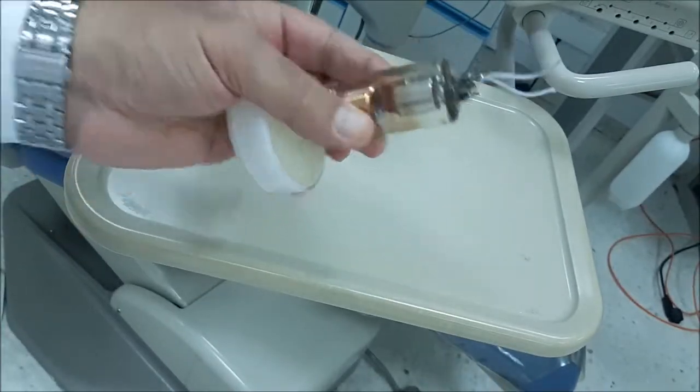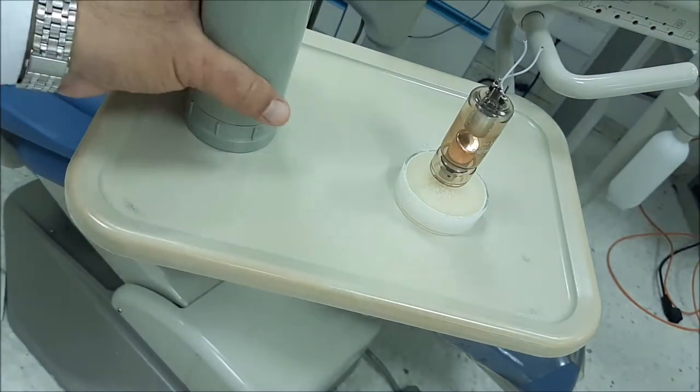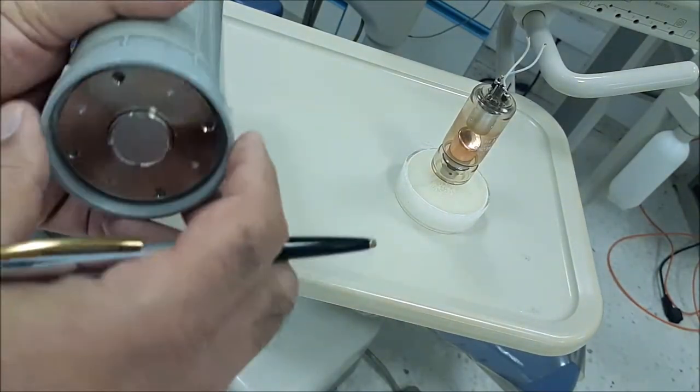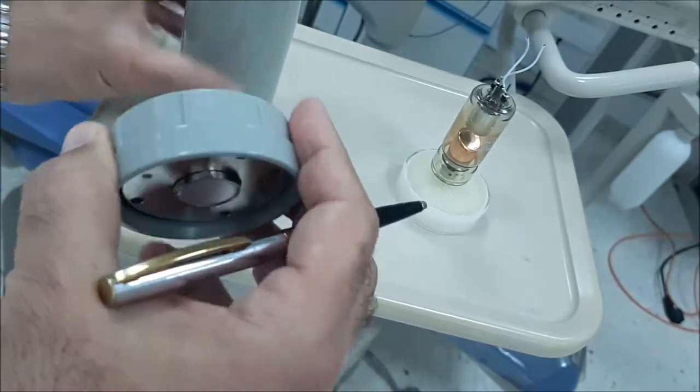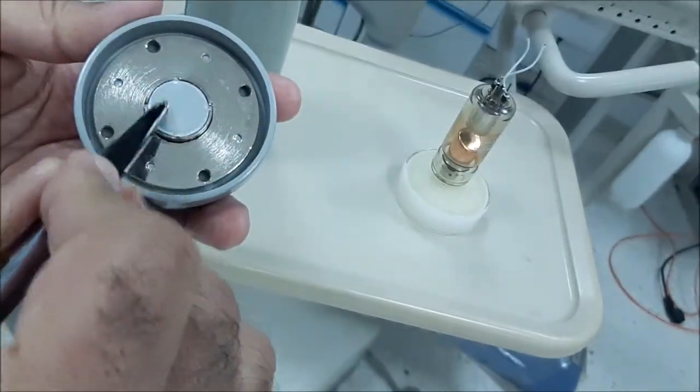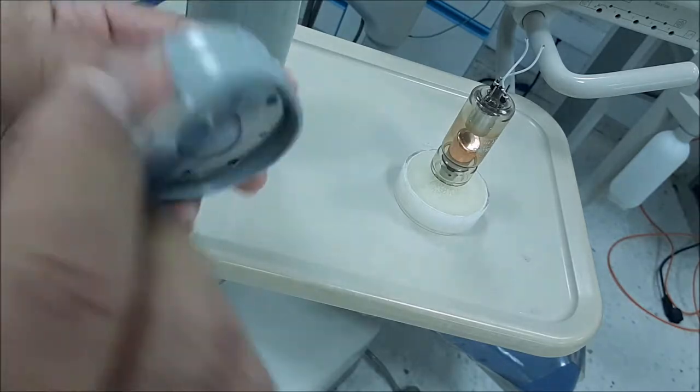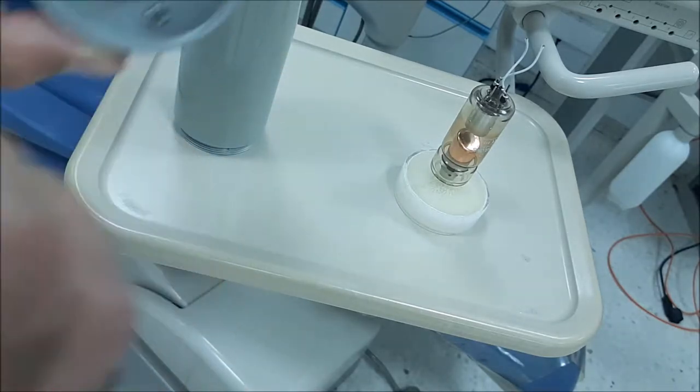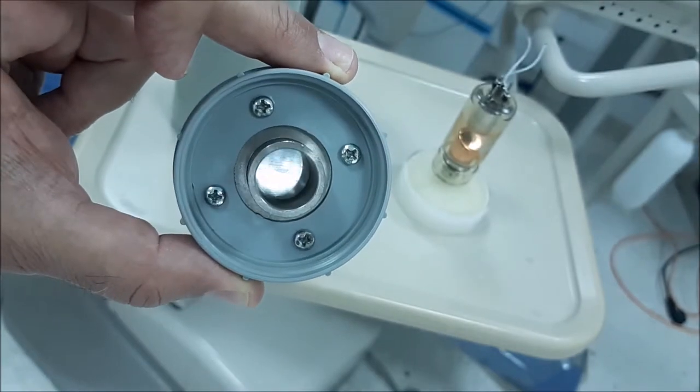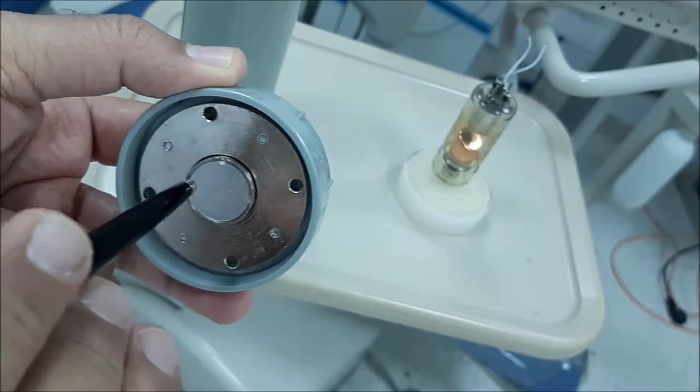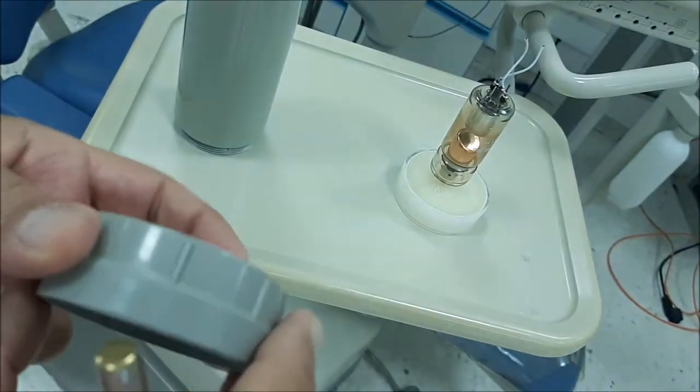This is the action of the aluminum filter which is present in the x-ray machines. If we look over here, we will see that this part, the inner shiny part, is an aluminum filter that is 1.5 mm thick.